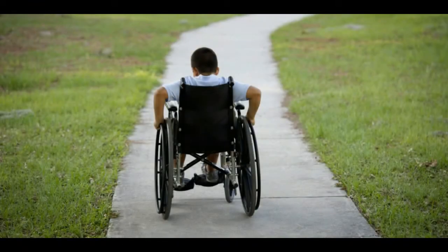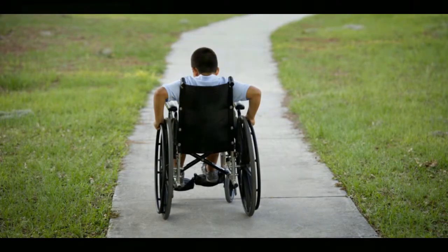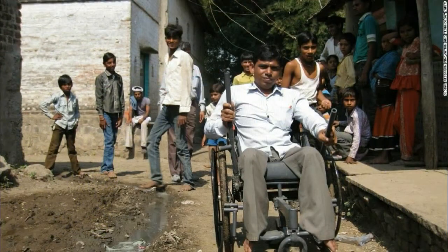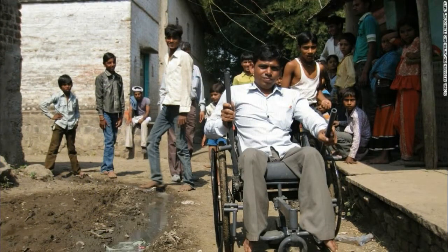I'm Tanmay and this is a video overview of my idea for a hybrid assistive wheelchair exoskeleton. 1.1 million people in India alone suffer from limited physical mobility.